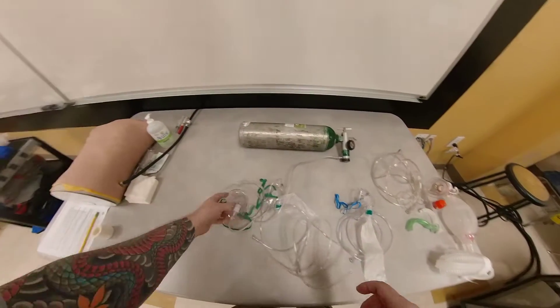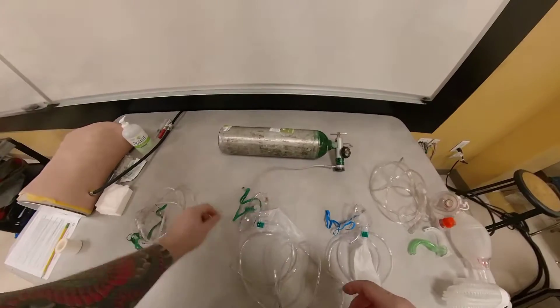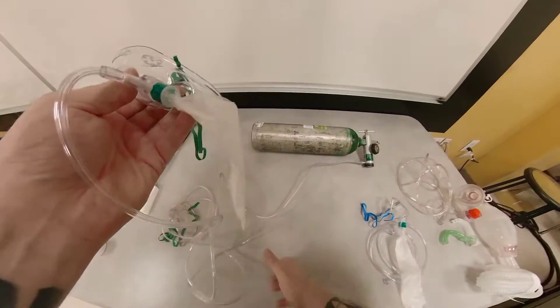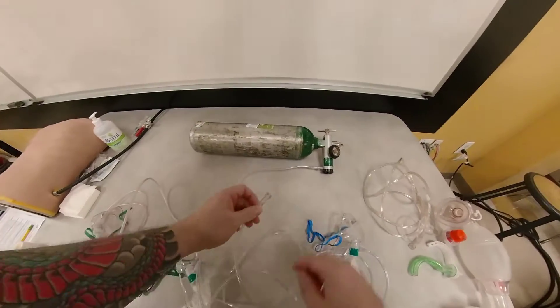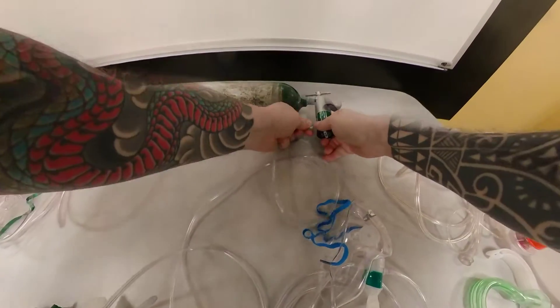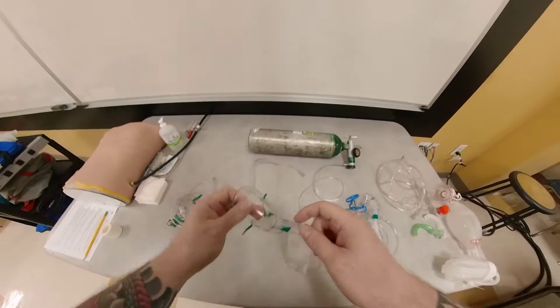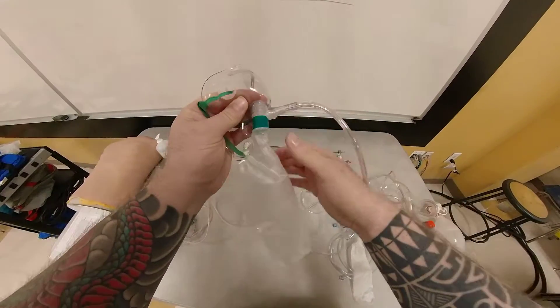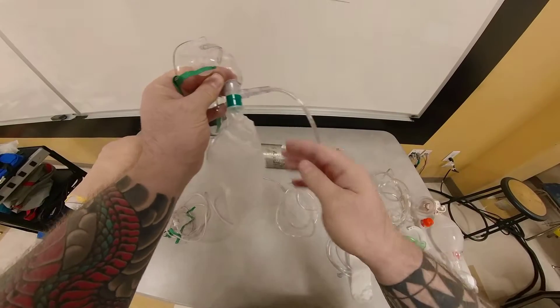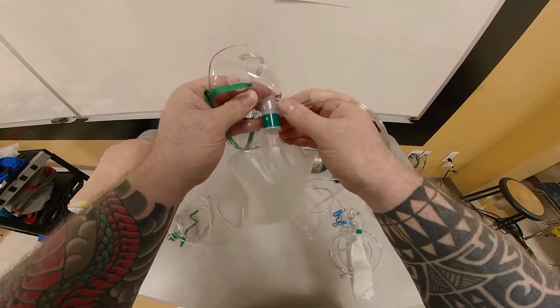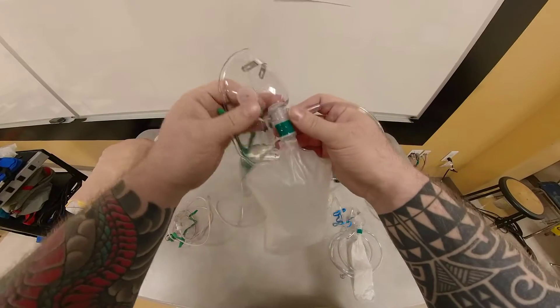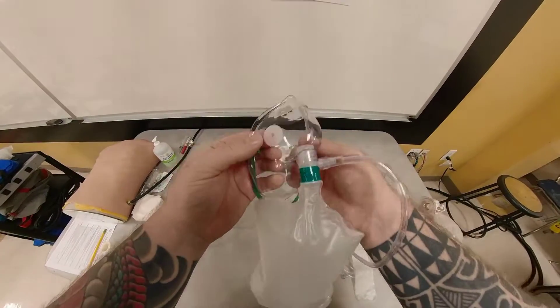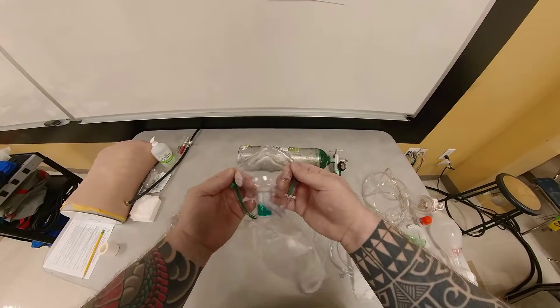Now when we move to another device here, and we connect it to our tank, sometimes this is incorrectly stated as a non-rebreather mask. So here, what I'm holding in my hand is incorrectly interpreted as a non-rebreather mask. And I'll explain to you why this is not a true non-rebreather mask. If you look, yes, I do have a reservoir bag which is inflated, but if you look at these openings here, one has a one-way valve, and the other one is missing it.